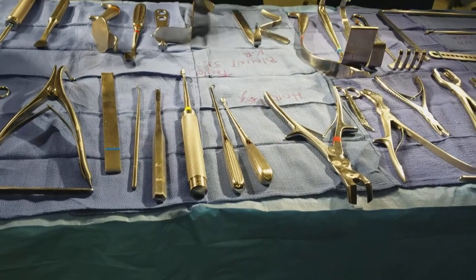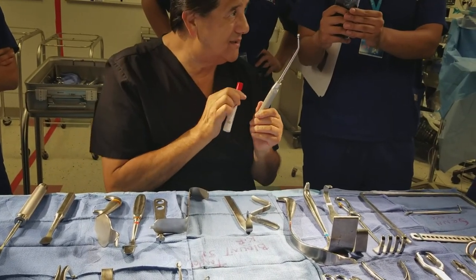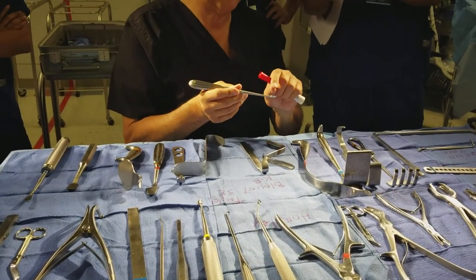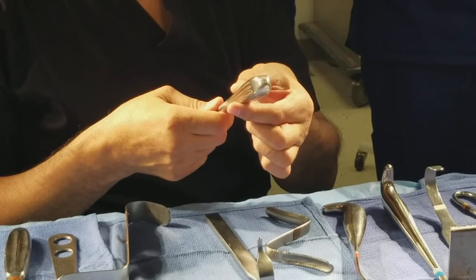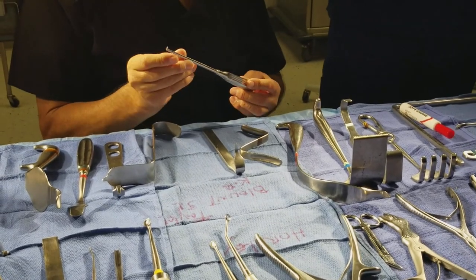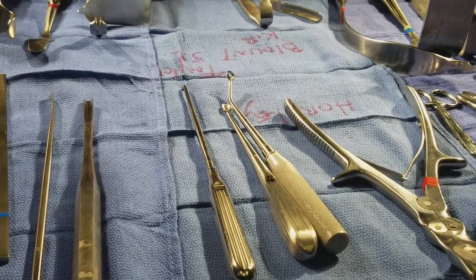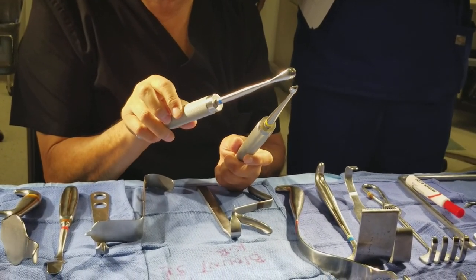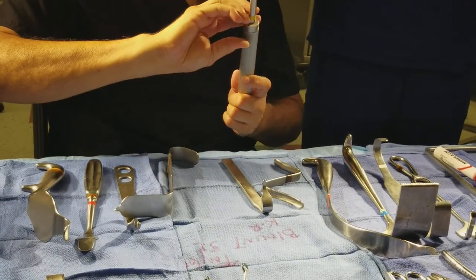Here are your curettes. This happens to be a ring curett — technically an angled ring curett — and they come in many sizes. Here's your spratt bone curett; this is like a medium one. If the doctor asks for one, give the medium and he may ask for bigger or smaller. The handle tells you it's a spratt bone curett. Here's an angled spratt bone curett — there's an angle at the end used to curett bone. And here's your cob curett — same handle family as the cob elevator but it's a curett. There are also longer cob curettes with wooden handles for spinal fusion.